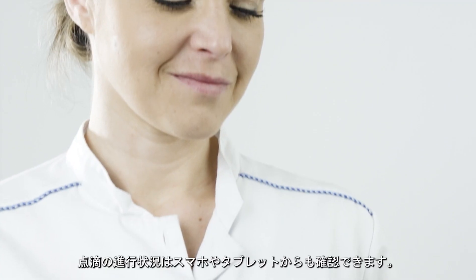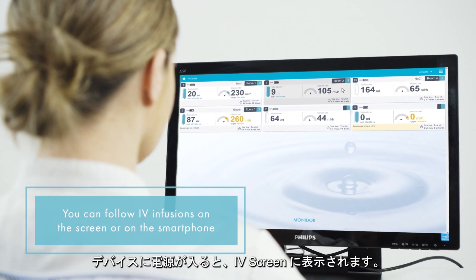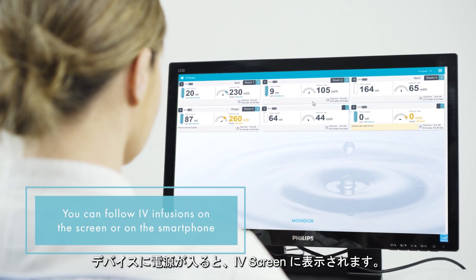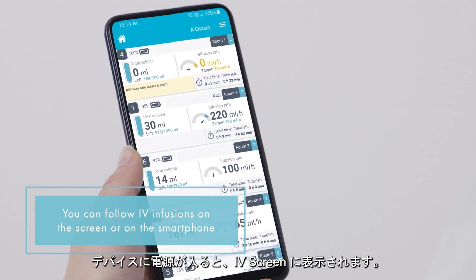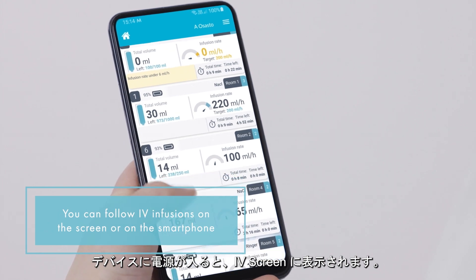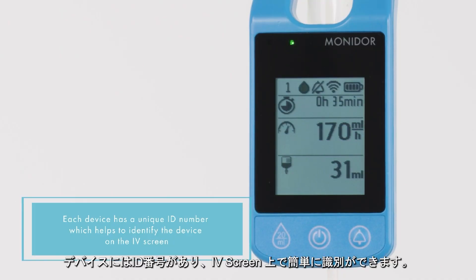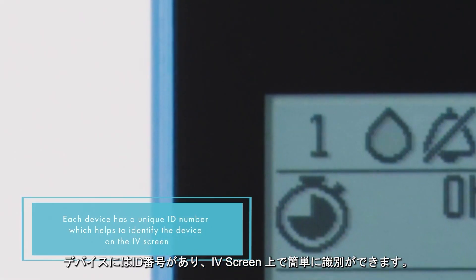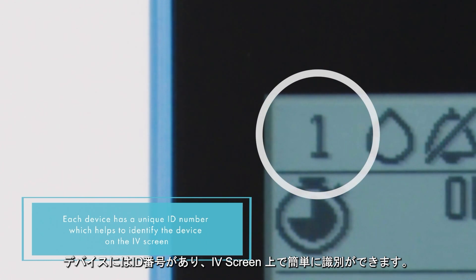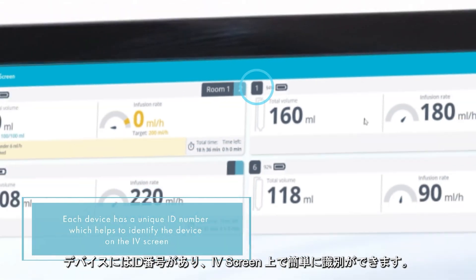When the MoniDrop is switched on, the device data appears automatically to the remote monitoring IV screen. Each device has a unique ID number, which helps to identify the device on the IV screen.